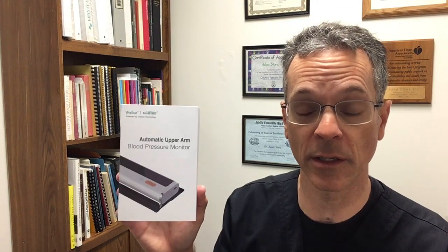This, in my humble opinion, is probably the best blood pressure machine that you could use at home, because it has an extra bonus that most blood pressure machines don't have — you can do your own EKG. This company sent this to me to get my opinion about it and do a review. Many companies do this; they send me things and need feedback to benefit them so they can further develop their product. And this blood pressure machine is pretty awesome.